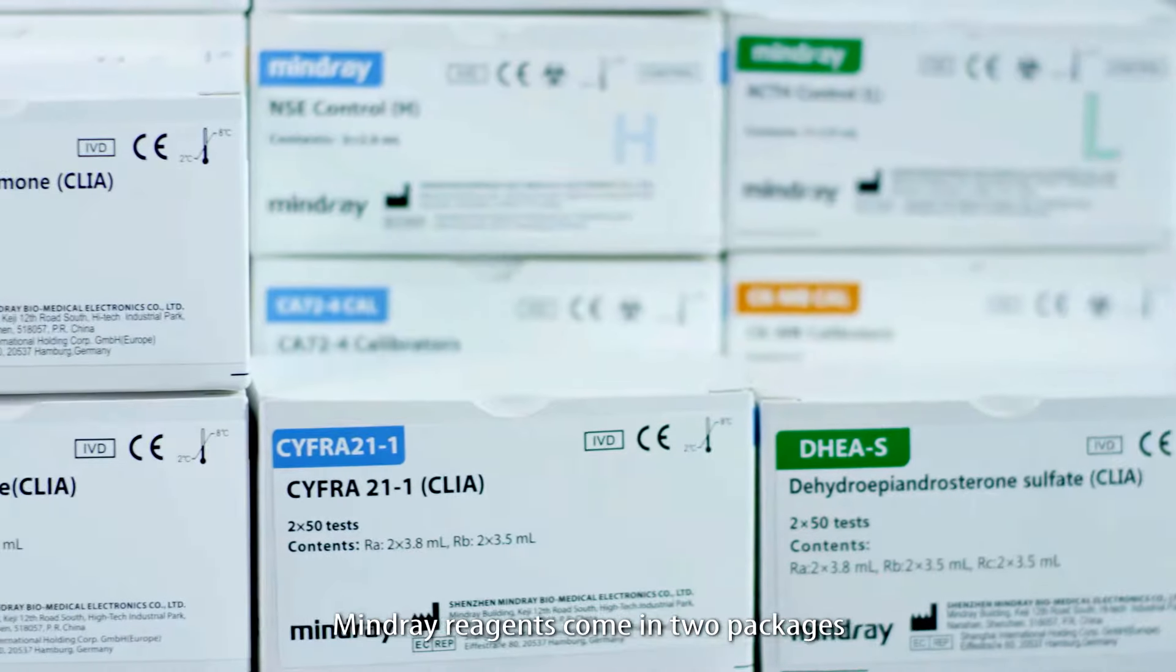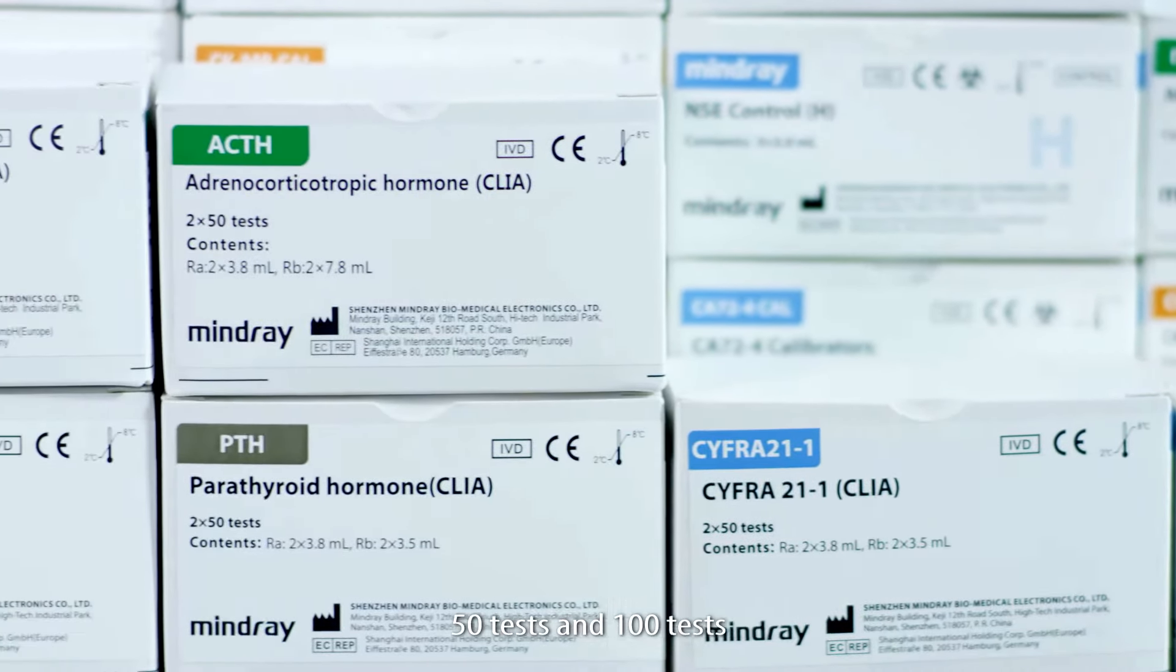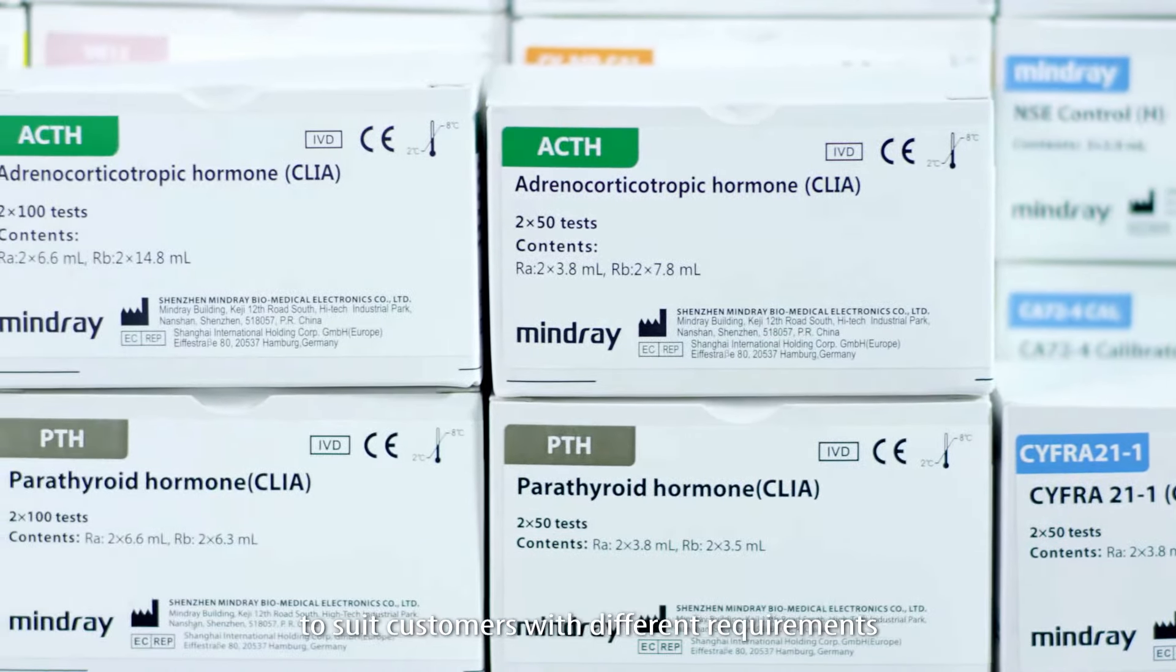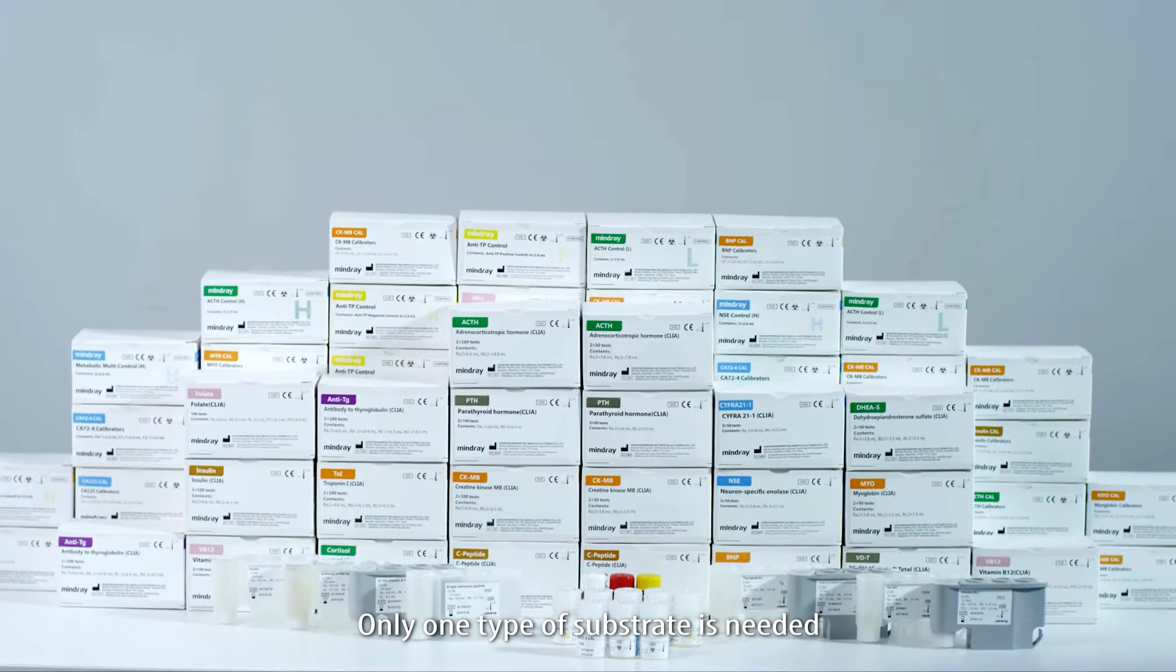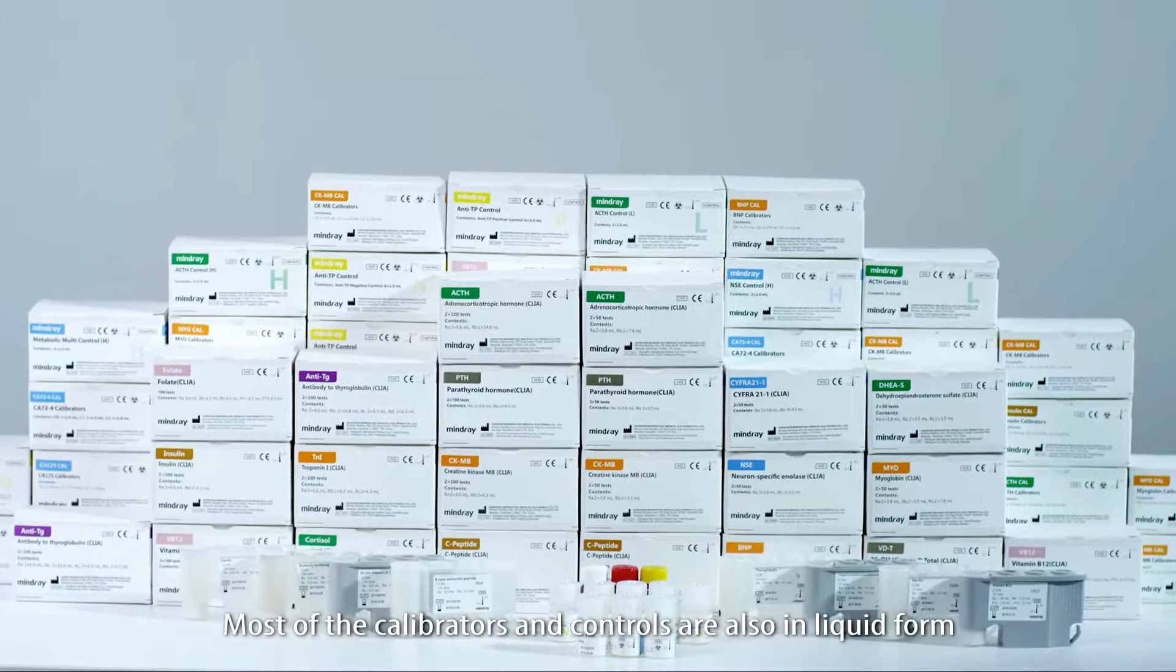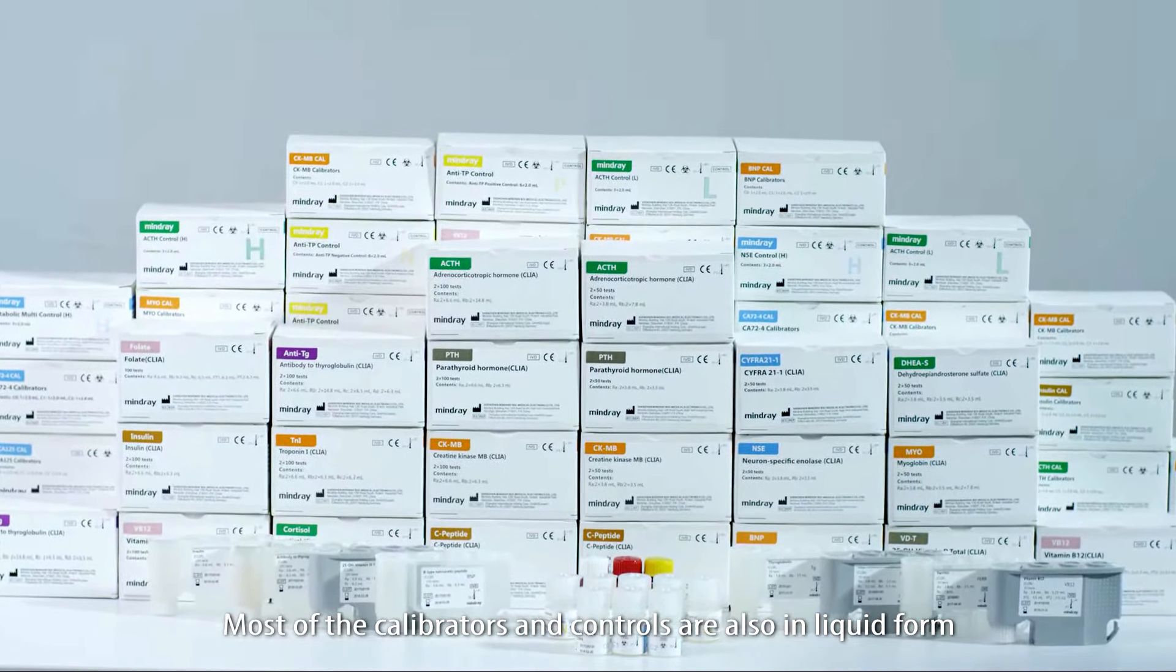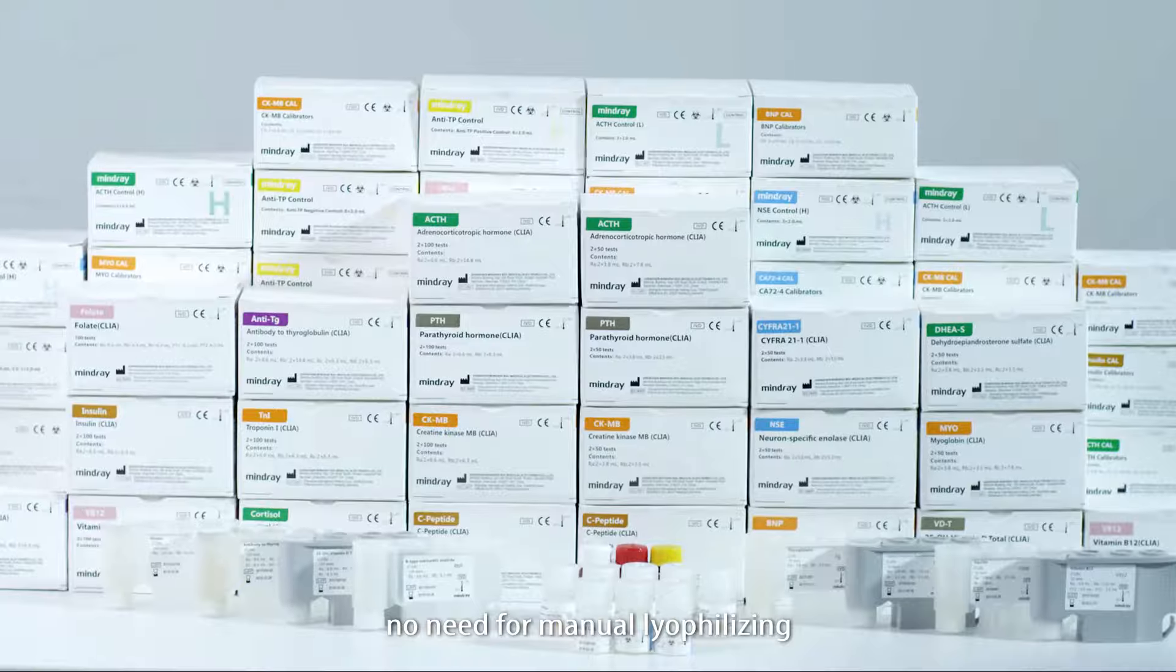Mindray reagents come in two packages: 50 tests and 100 tests, to suit customers with different requirements. Only one type of substrate is needed. Most of the calibrators and controls are also in liquid form, with no need for manual lyophilizing.